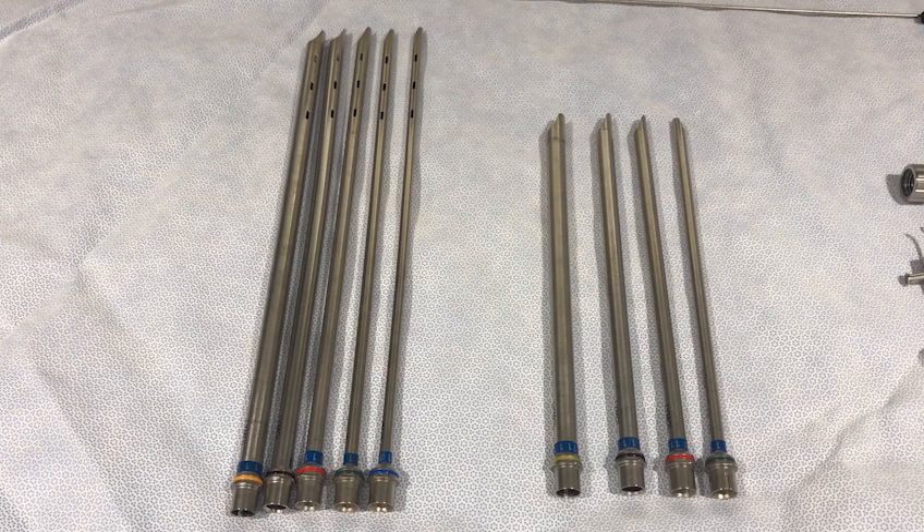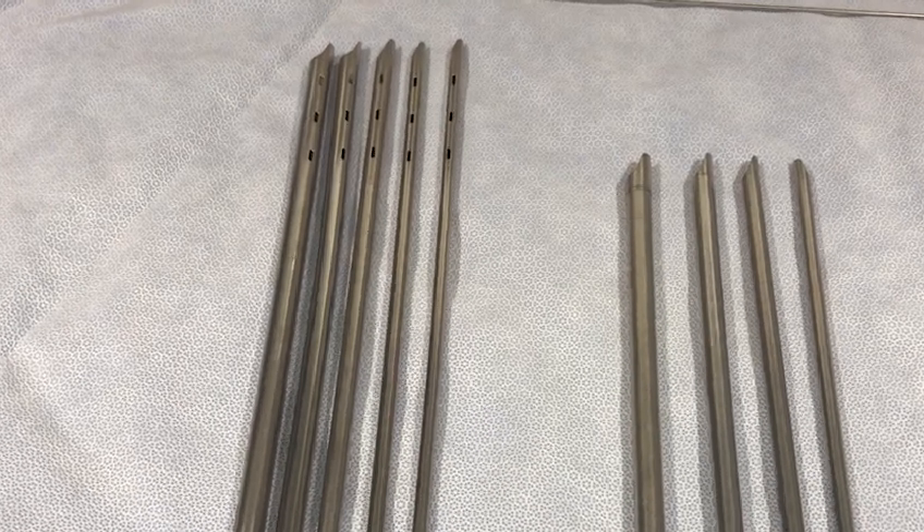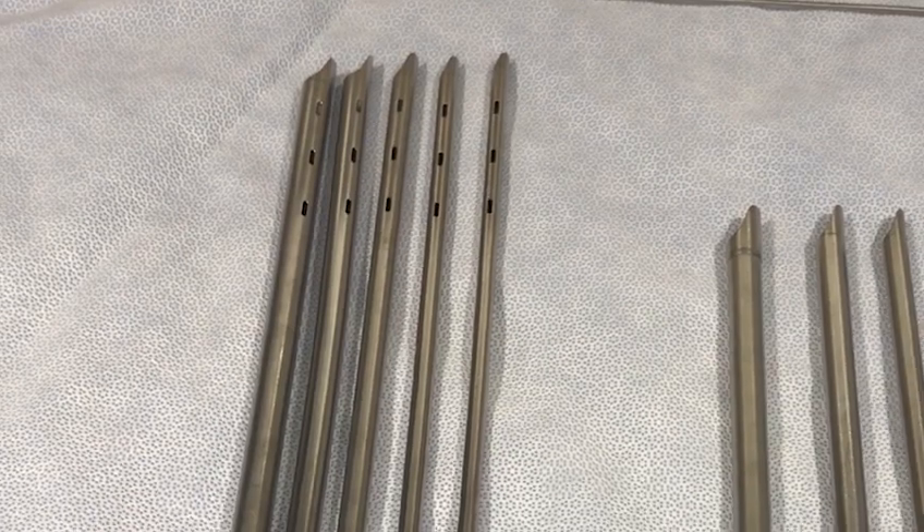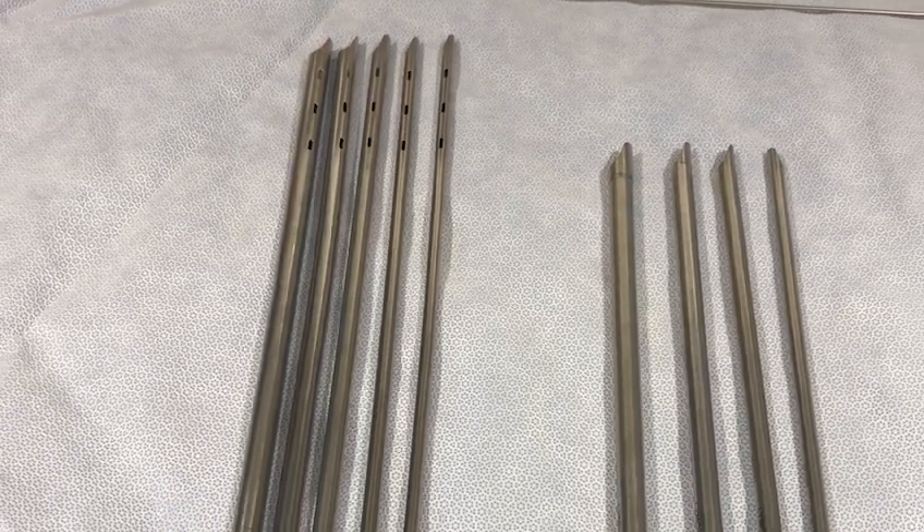There are five sizes of ventilating Bronchoscopes that are color-coded based upon the internal and external size diameters. The Bronchoscope has side ventilating ports, which permits ventilation into the contralateral lung when the Bronchoscope is in either the right or left mainstem.